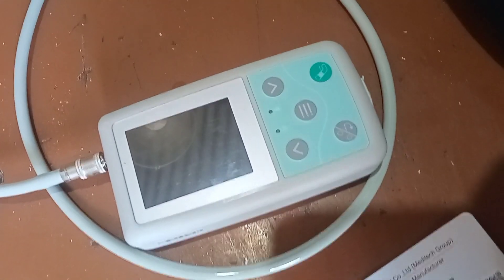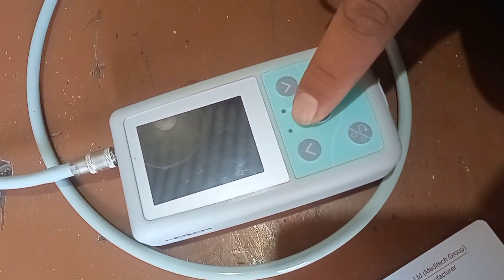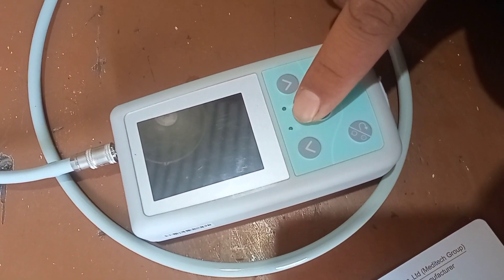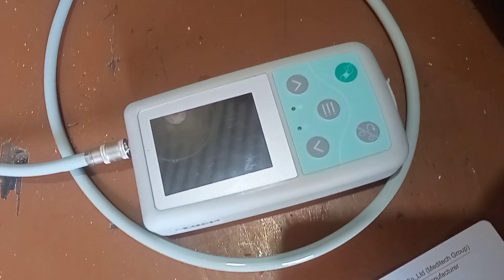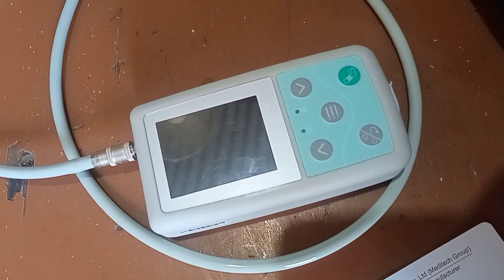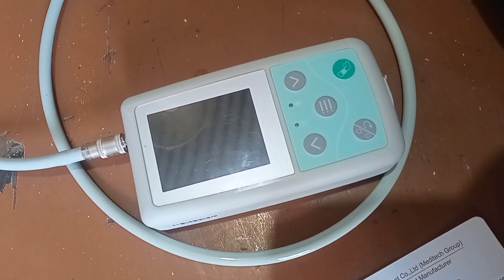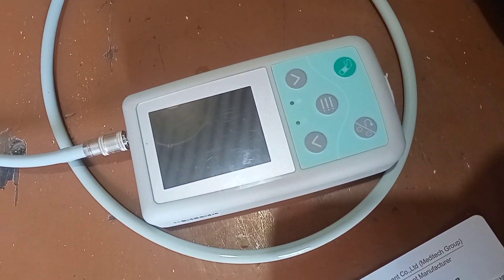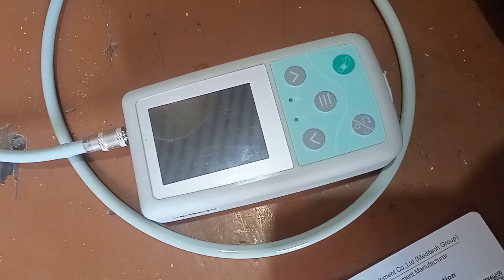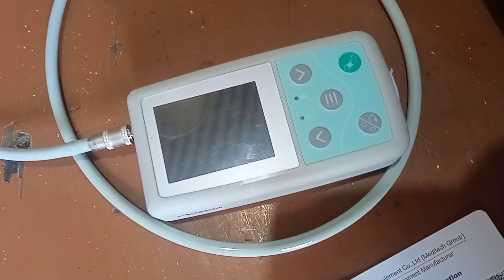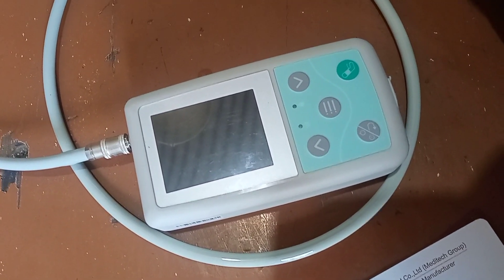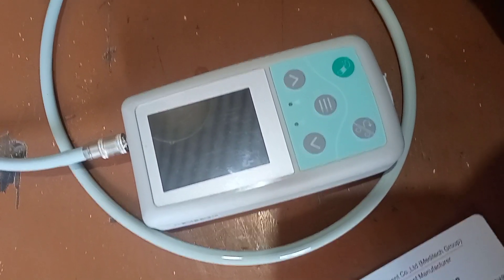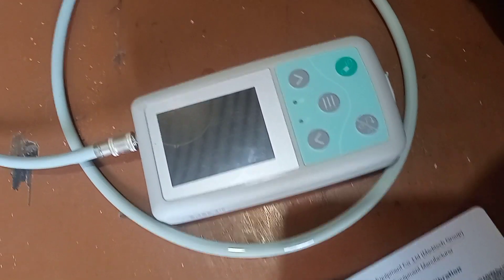You can see the blinking light from the system that the system is running, taking the data as we have defined in the time interval. If this is not indicating, the system is not functioning properly.